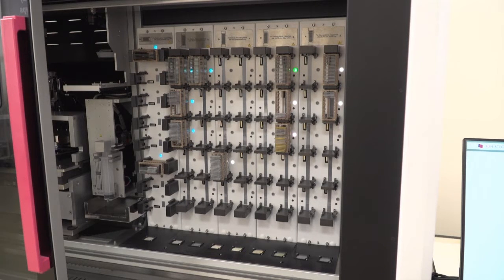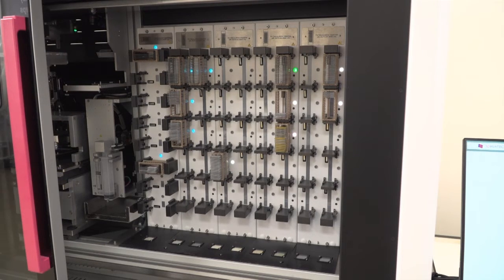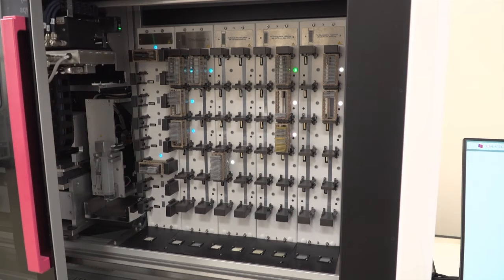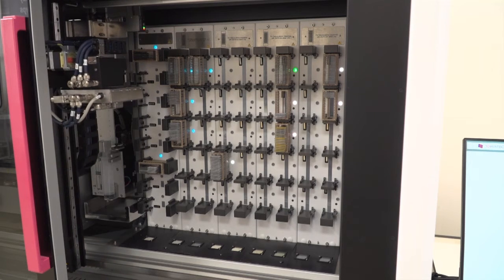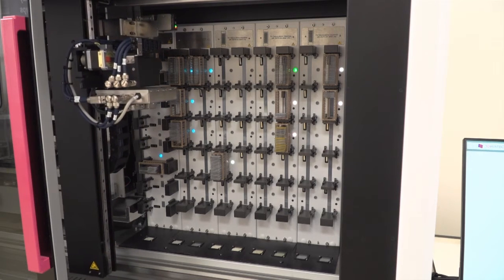The scanner will check during the rack loading if anything moved. There's no slide sticking out.